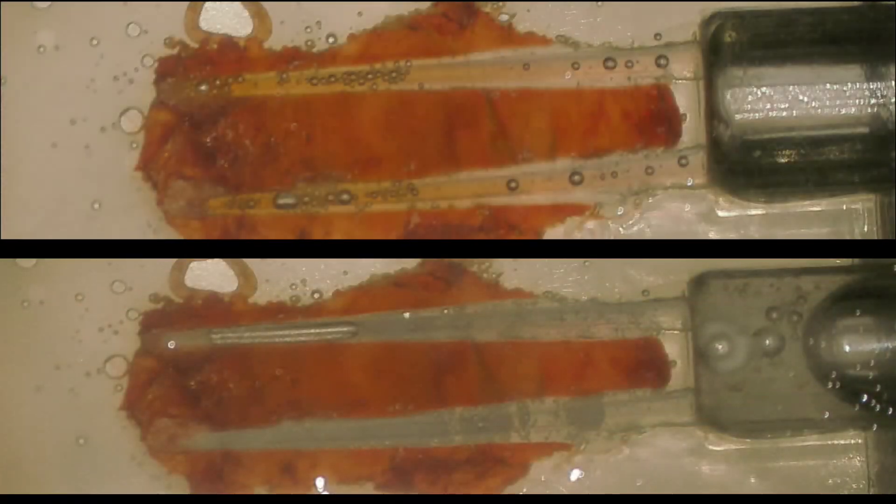And we're coming up about to a two-minute mark. Let's compare. Passive irrigation on the top and activated irrigation on the bottom. I just don't see that big of a difference in this small time frame.